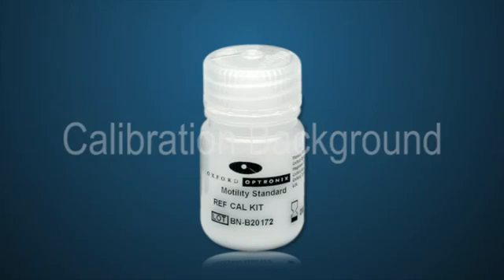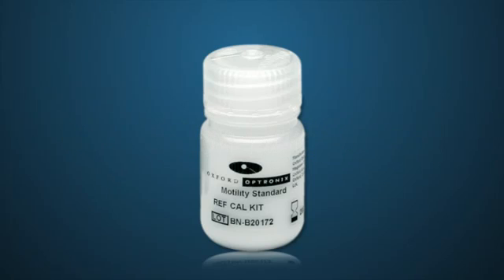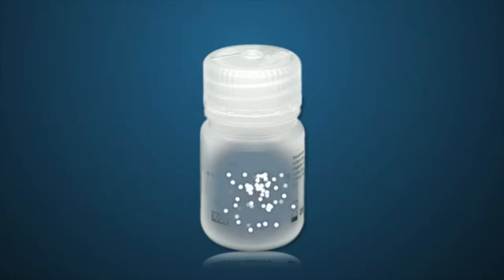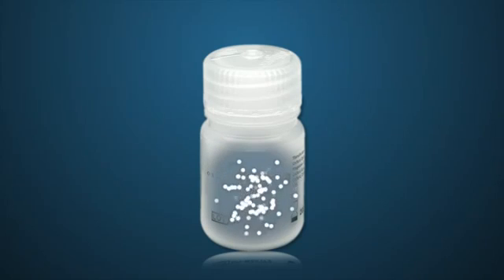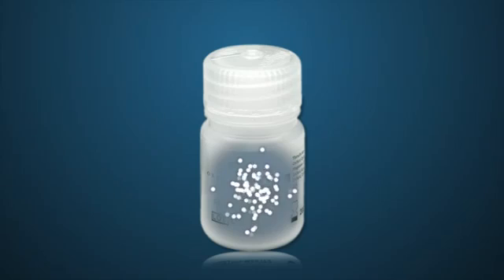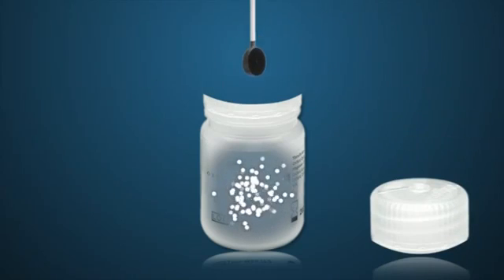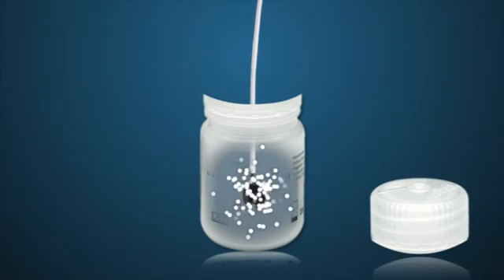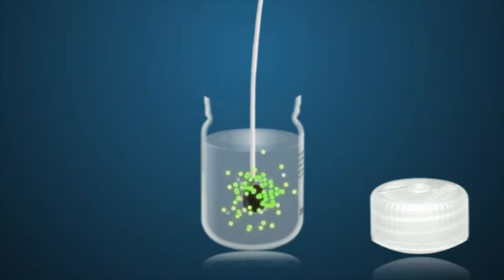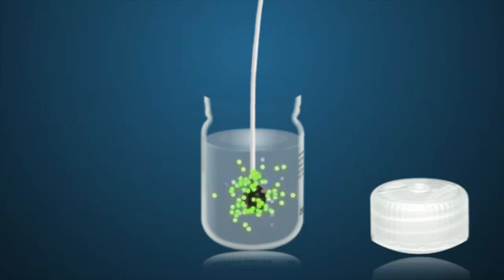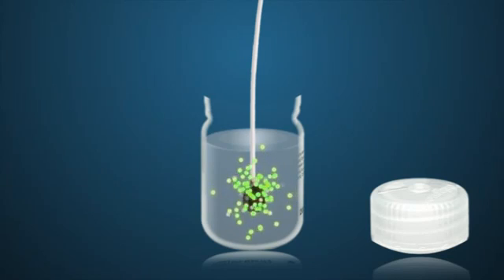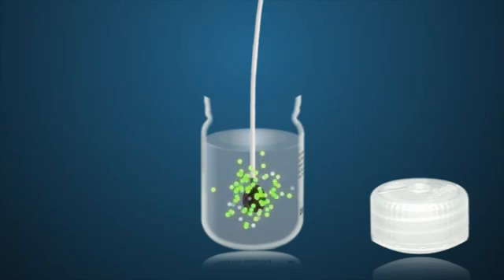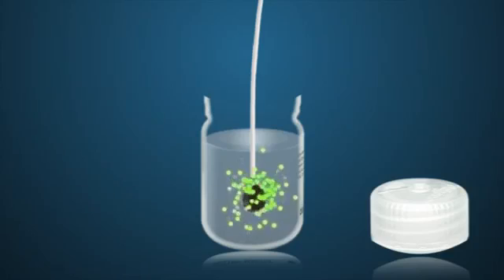Calibration background. The ML191 calibration kit contains a concentration of latex spheres in suspension. Probes are calibrated using the Brownian motion of latex spheres as a known reference. During probe calibration, it is therefore important to keep the bench free of external vibration and movement.